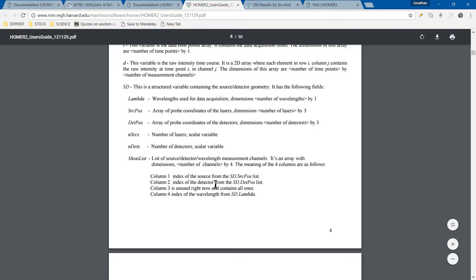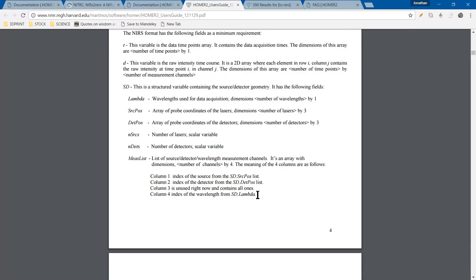And then four as the column dimension. The columns are labeled here. The first one is going to be the index of the source position, the index of the detector position. The third one is completely unused at the moment, so it's all just going to be ones. The fourth column is going to be the wavelength. In our lab, we have two wavelengths, so basically you have a whole series of row data for the first wavelength, and then a duplicate of that for the second wavelength. If you have more wavelengths, obviously you'll have more.